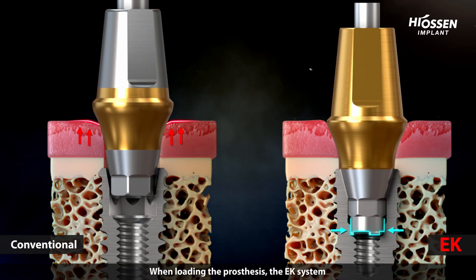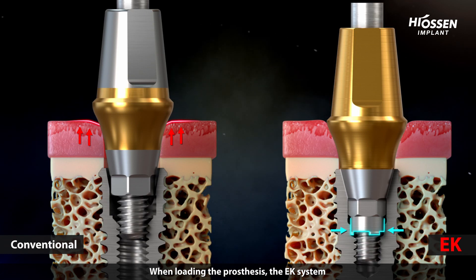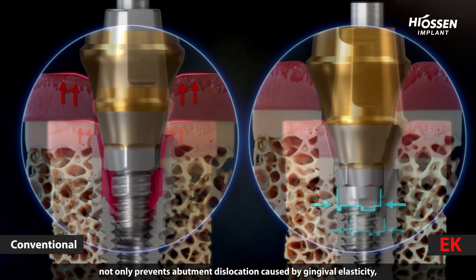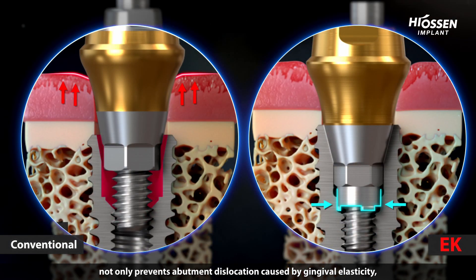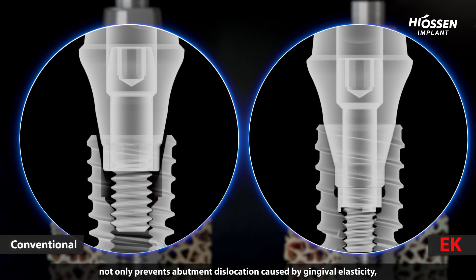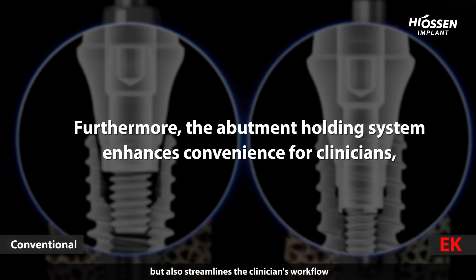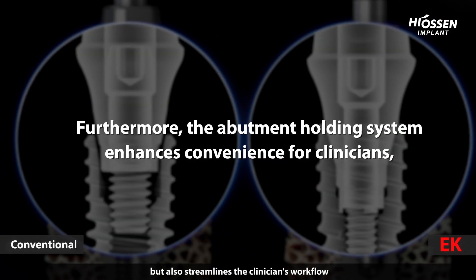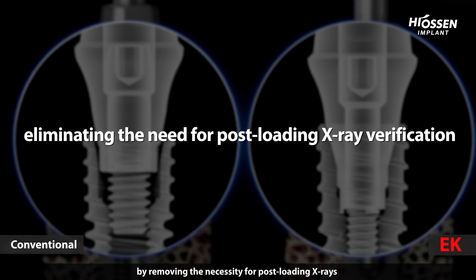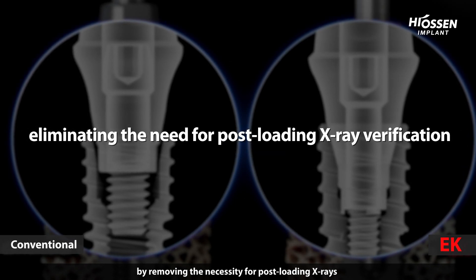When loading the prosthesis, the EK system not only prevents abutment dislocation caused by gingival elasticity, but also streamlines the clinician's workflow by removing the necessity for post-loading x-rays.